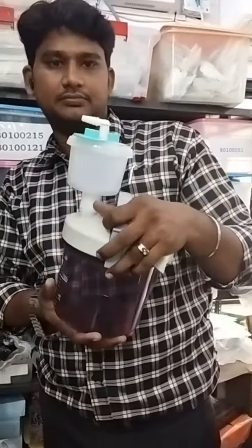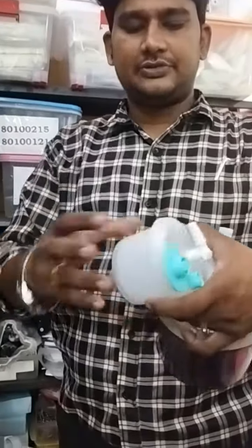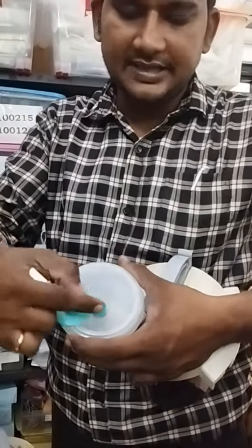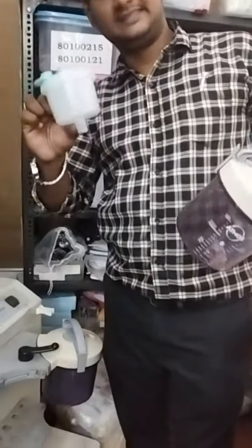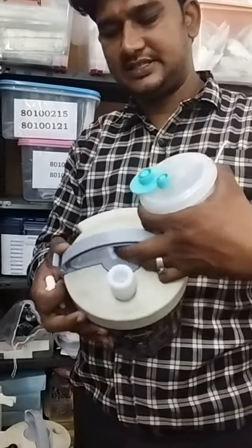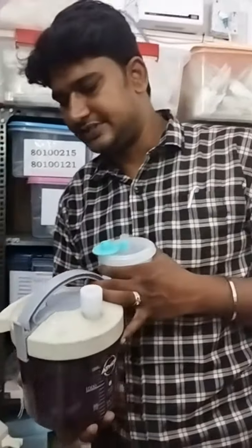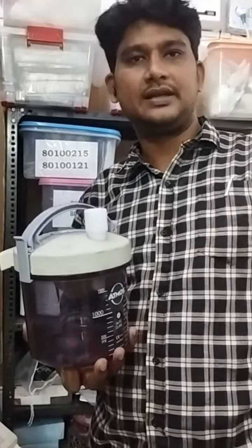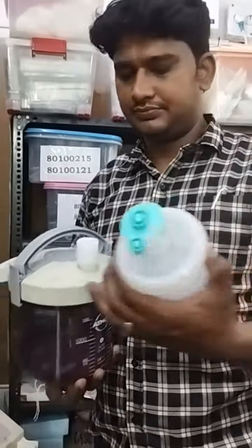Water or tissue is collected here, and fluid and other liquid things will go into the jar. Once it's full, just remove and hold it. All the biopsy material will be there — take out the cap, put it on the bottom, take out the connector, put the small cap on, and you can send it for biopsy. That is the ultimate purpose of the tissue collector. After that you can open the jar, remove the handle, and pour the waste into the biowaste. This adapter is very important — don't miss it, because you can use it for other tissue collectors as well. It's disposable, so generally people throw it out, but don't.